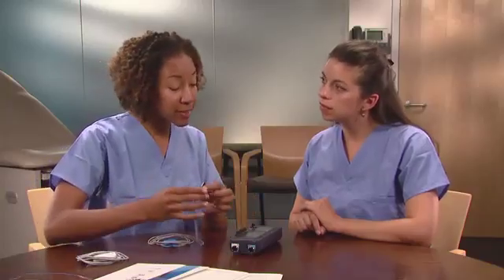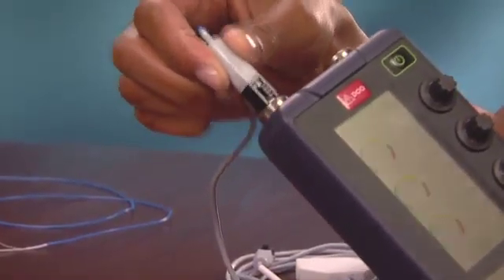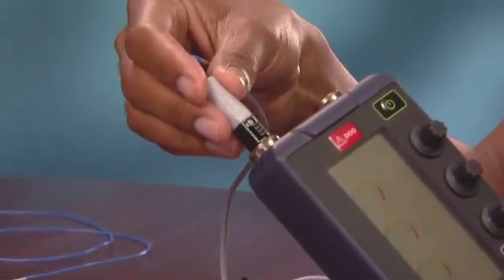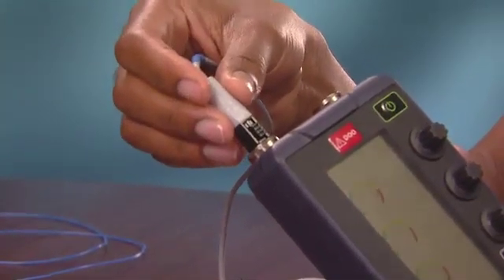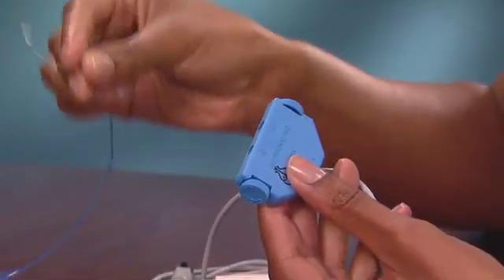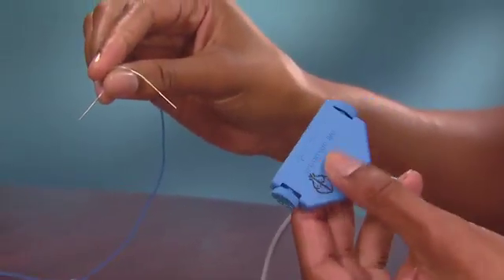Verify the device is off and secure the connection. Is there a way to know that the cable has been completely inserted? Yes, the audible click verifies that the plug is completely inserted into the socket. In addition, to ensure a good connection, gently pull on the cable connector. Now connect the leads to the appropriate cable — for example, match positive and negative leads to corresponding positive and negative.